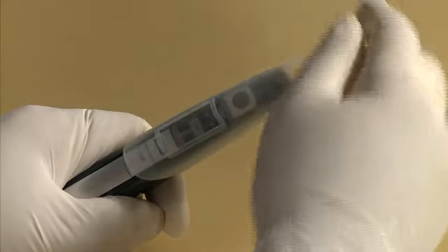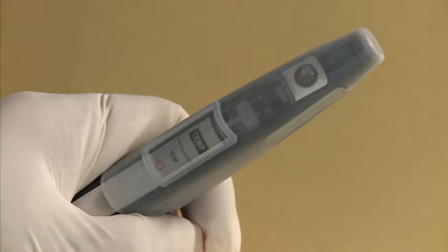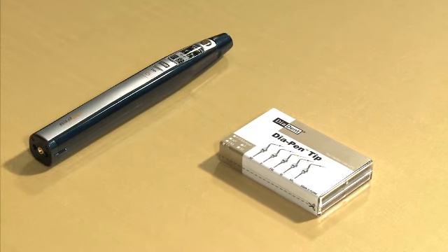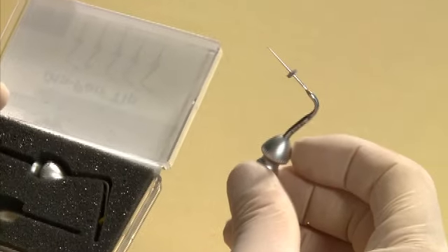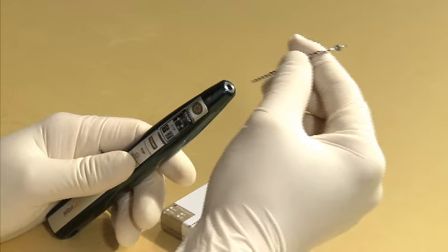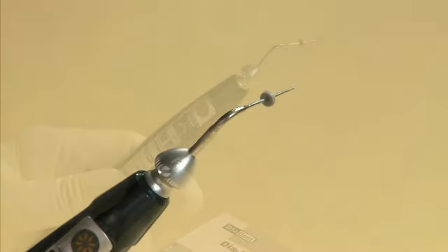Place the silicone cover over the top of the handpiece prior to use. The silicone cover can prevent damage to the device from debris. Choose a suitable pen tip size from the box. Included in the box are fine and fine medium pen tip sizes. Insert the pen tip into the handpiece until it securely snaps into place.